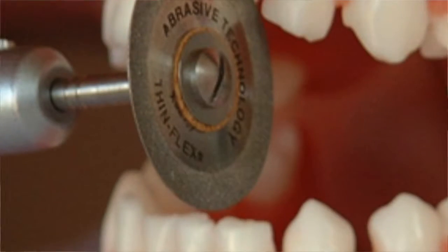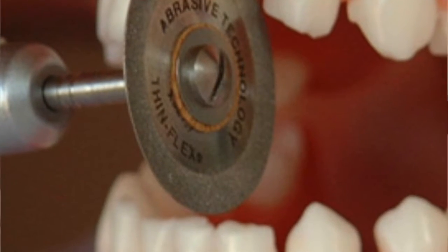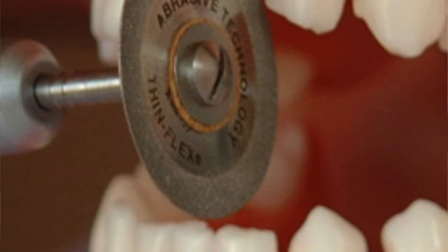Some people are using different methods where they're using high speed instruments and they go in and quickly make a space between your teeth. I don't like that personally because I have less control. I like to be able to control exactly the amount of space I want to remove. And the importance of making that space is for creating the space to allow the movements to happen.